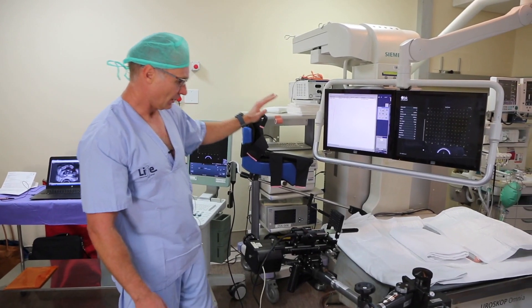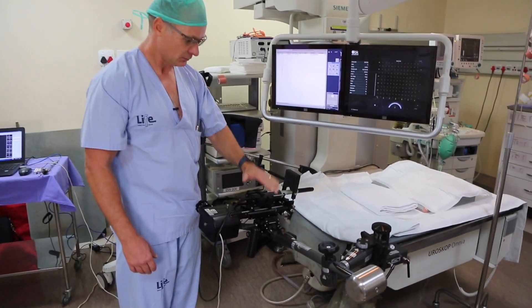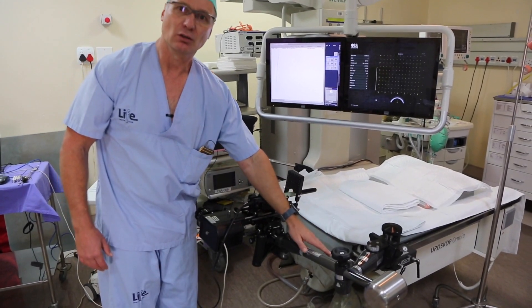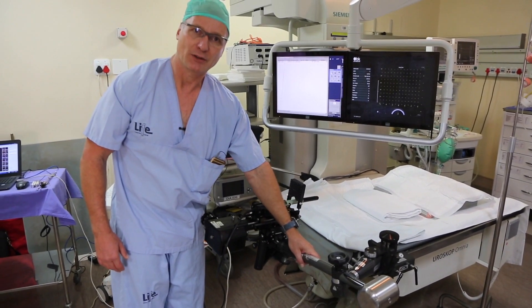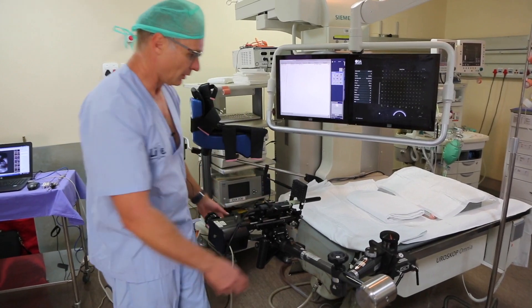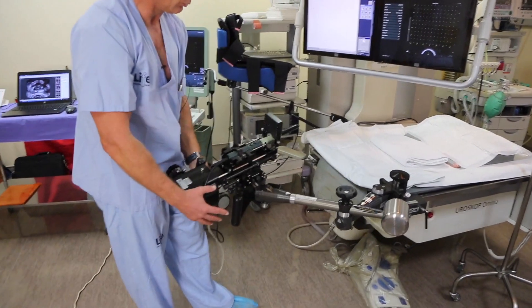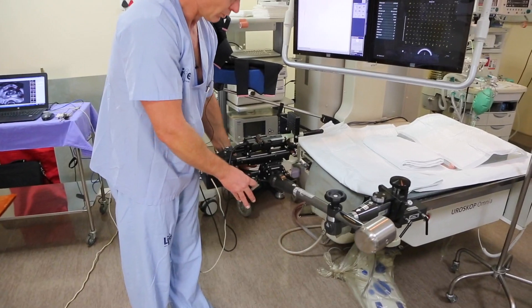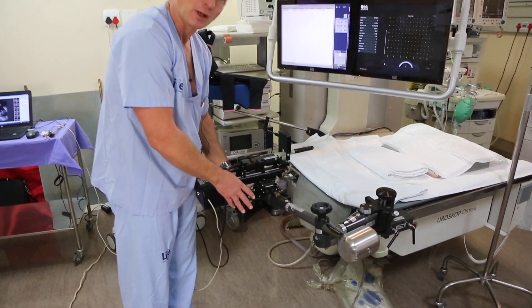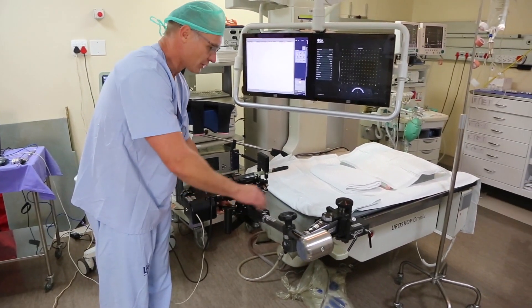What you see here is the ultrasound, the stepper, and the stabilising arm. This is a very mobile piece of equipment that can move around, and then we would place the ultrasound — it's a rectal ultrasound — in the right position.